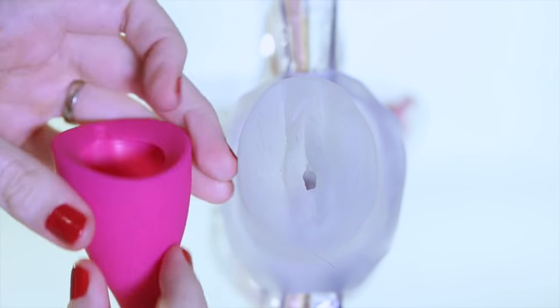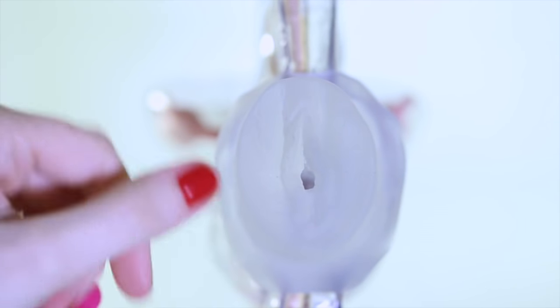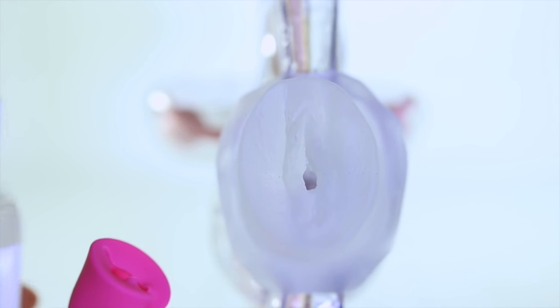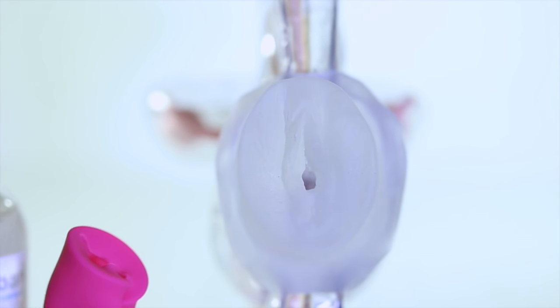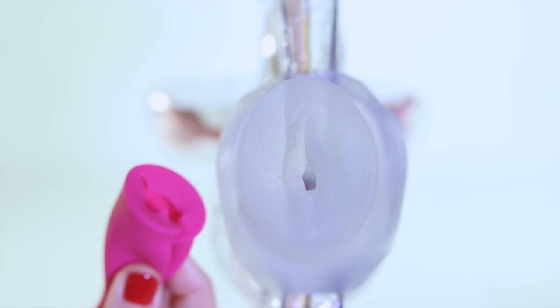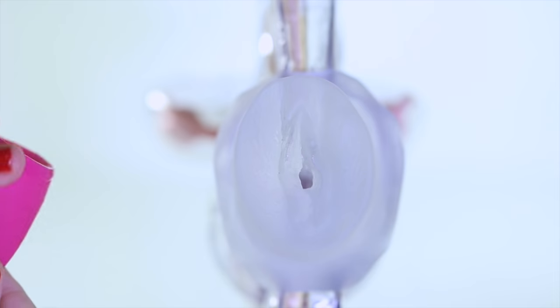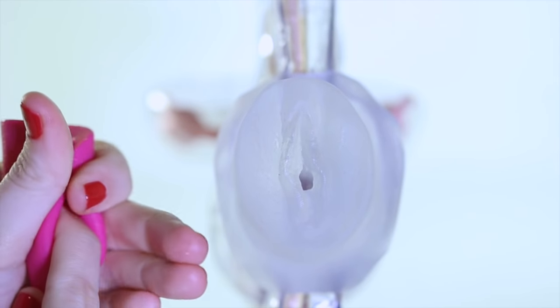There are many folds that you can try. For the purposes of this demonstration, because she is not naturally lubricated like a real woman would be, I'm going to use a lubricant on the cup itself, and the lubricant is silicone safe. It's a water-based formula, so if you're ever using a cup on a dry run, I do recommend using a lubricant on the cup just to make things go a little bit smoother, and you may even need it on your cycle. Just apply the lube around the rim, and if you feel like you need extra help, apply it around the walls. The lower you apply it, the messier it's going to be.